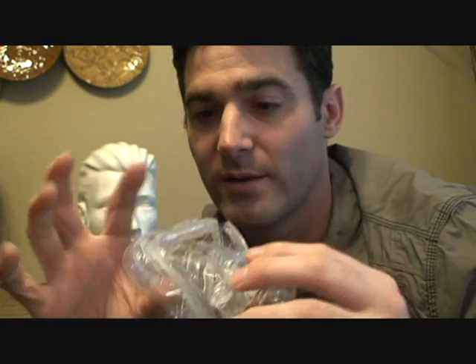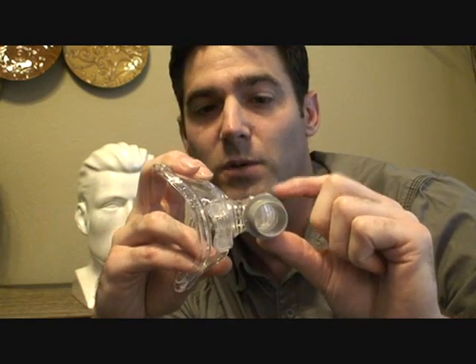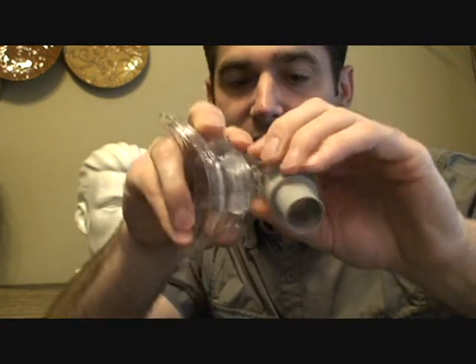The cushion is very easy — it's just held in place by being a tight fit, so all you have to do is pull it out. If you need a new replacement cushion, replace it with the same size and push it back in. To get the nozzle off for cleaning or replacement, you break it down like this.